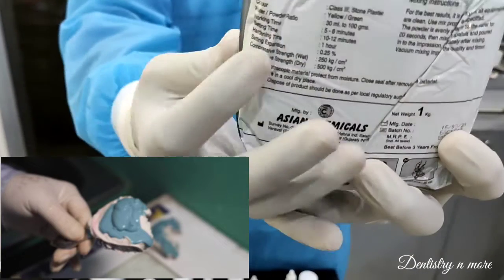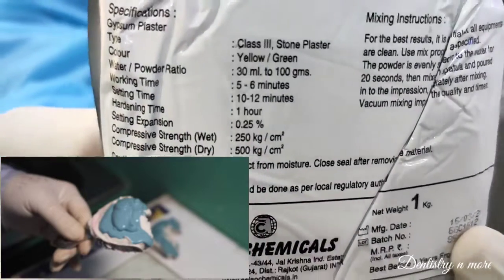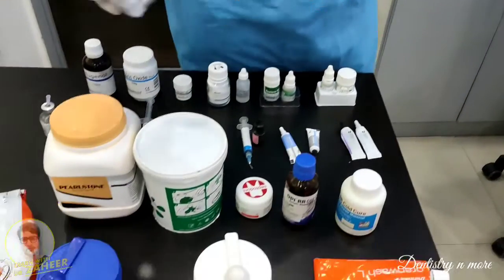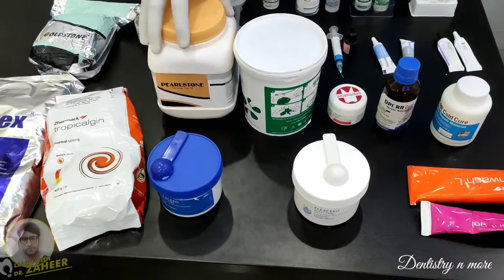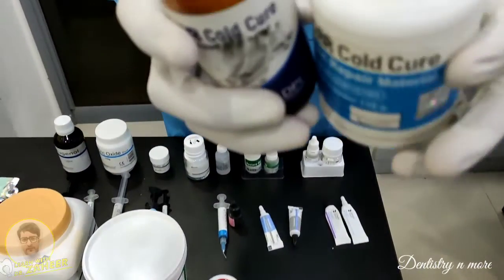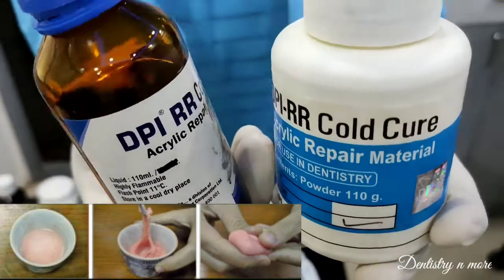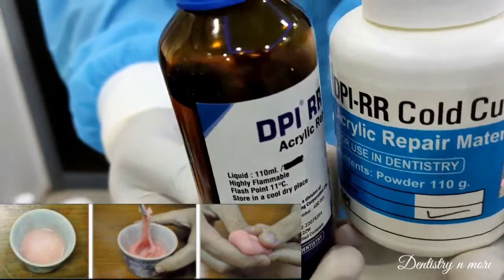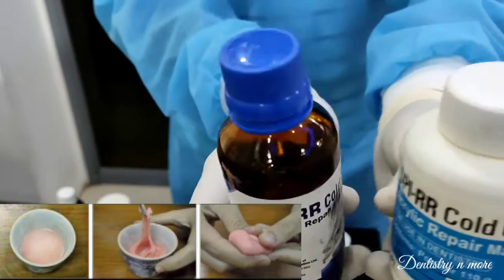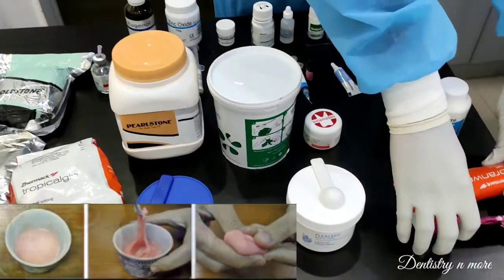The Gold Stone is green in color and its strength is a little lesser than the Type 4 die stone. You can see the working time and setting time on the packaging. We mix powder and water to the desired consistency and pour into the mold. Next we have cold cure acrylic powder and liquid — a denture fabrication material. Unlike heat cure acrylic, cold cure allows us to easily prepare or repair dentures using just the powder and liquid.